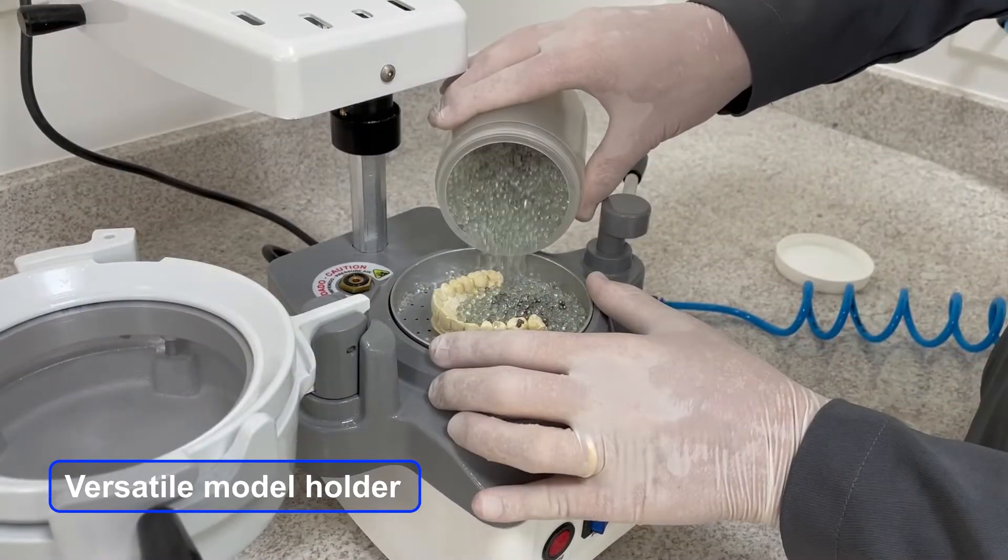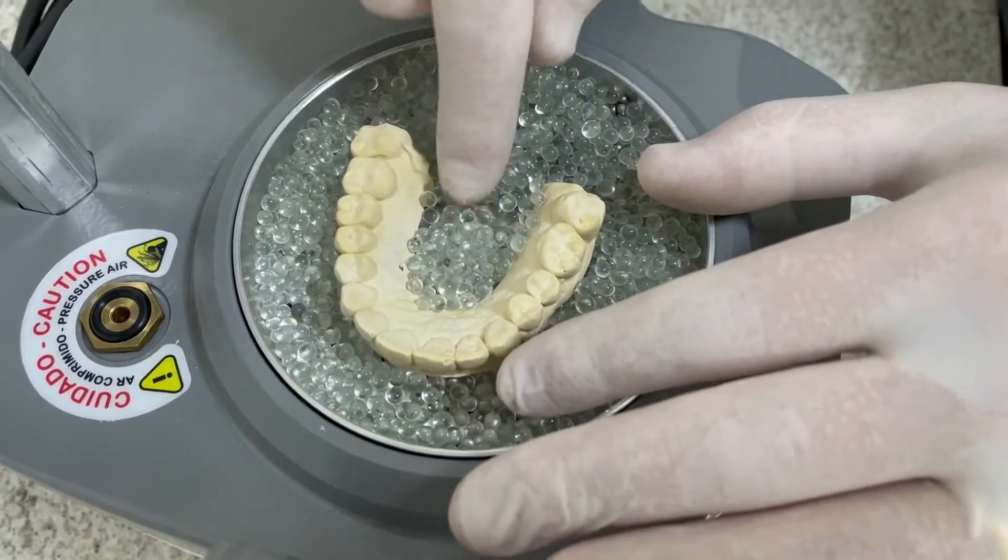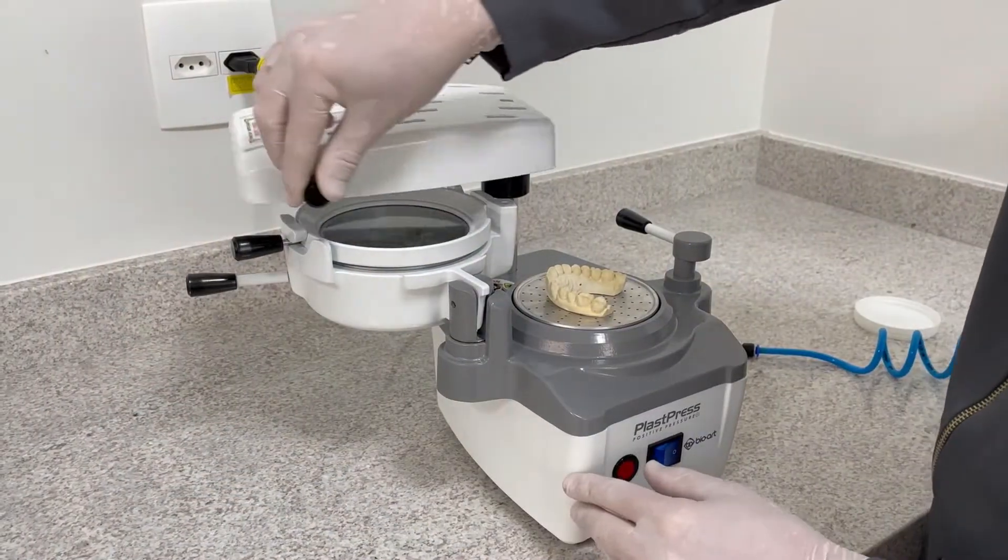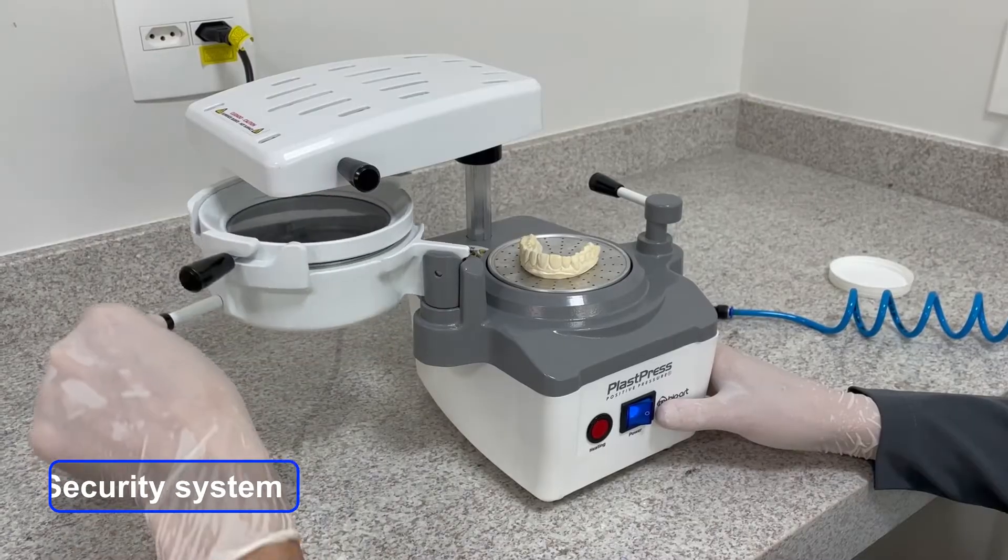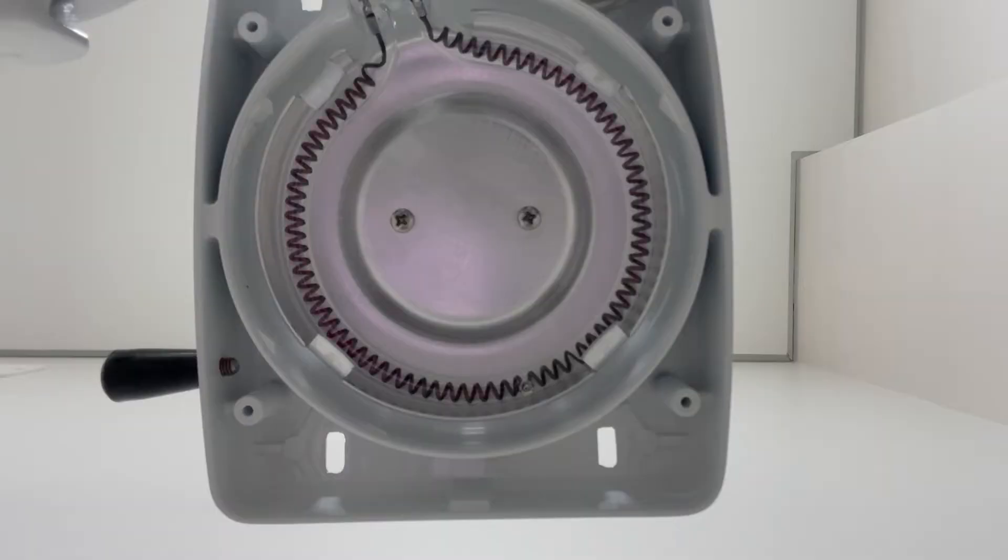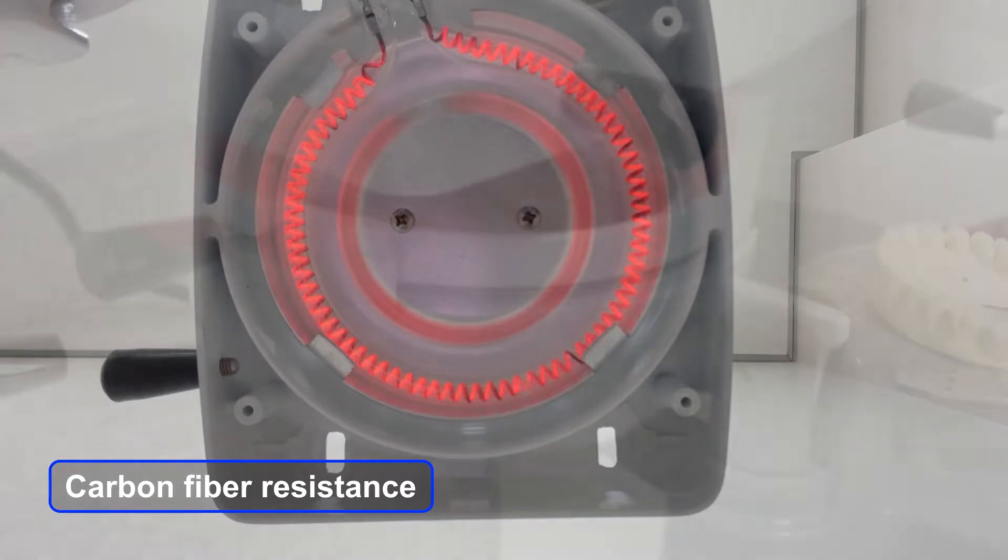Model holder with dual function: mug and flat. Micro switch for resistance operation. Fast and even heating.